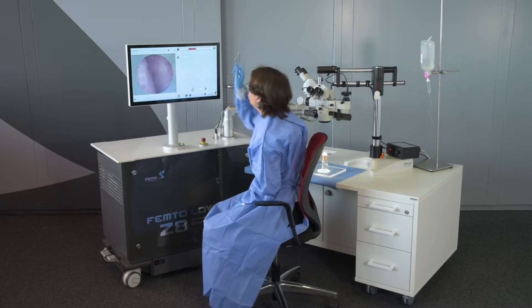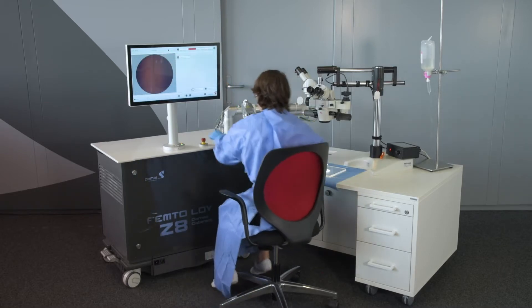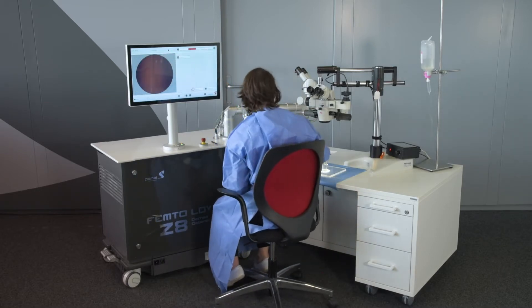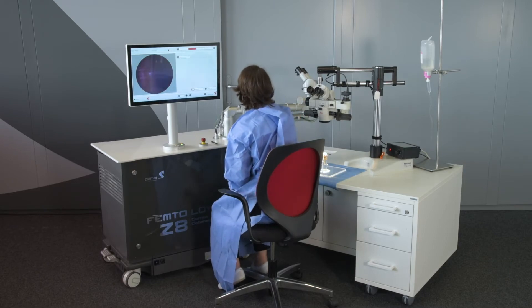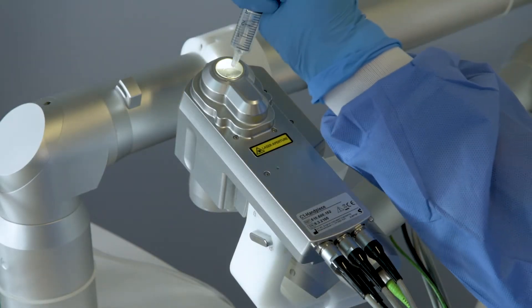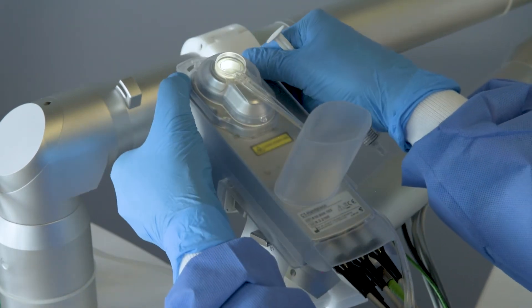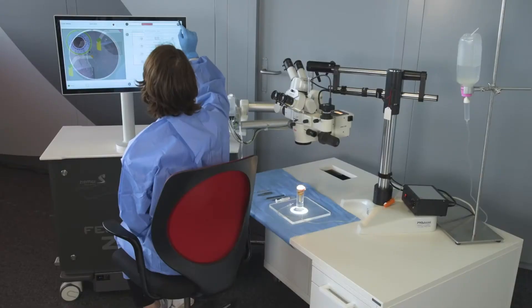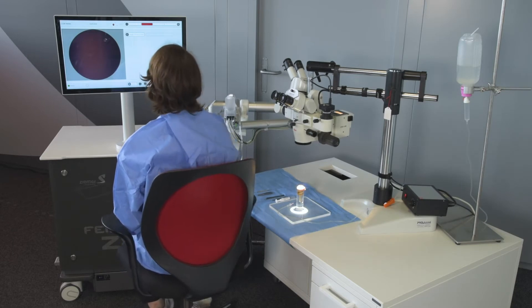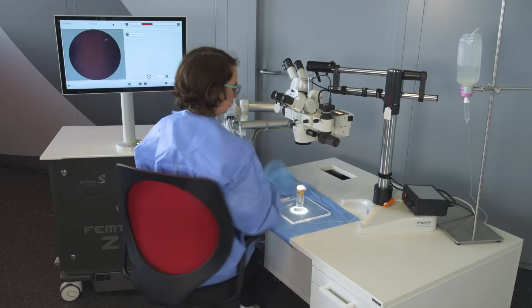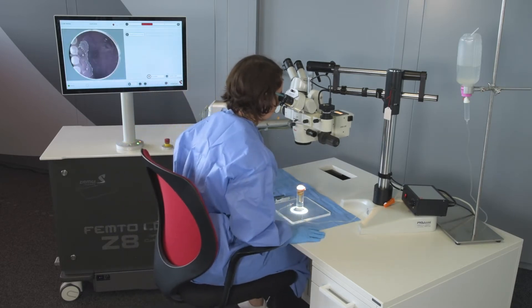I can proceed, then everything is set. Here in the vacuum screen, I have to apply a drop of water on the end piece, and I will put the casing on it. Then I'm able to proceed at the software. It's ready.